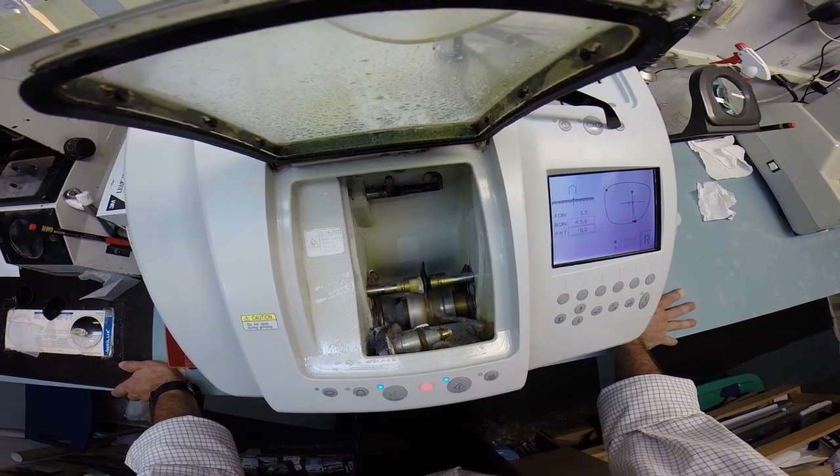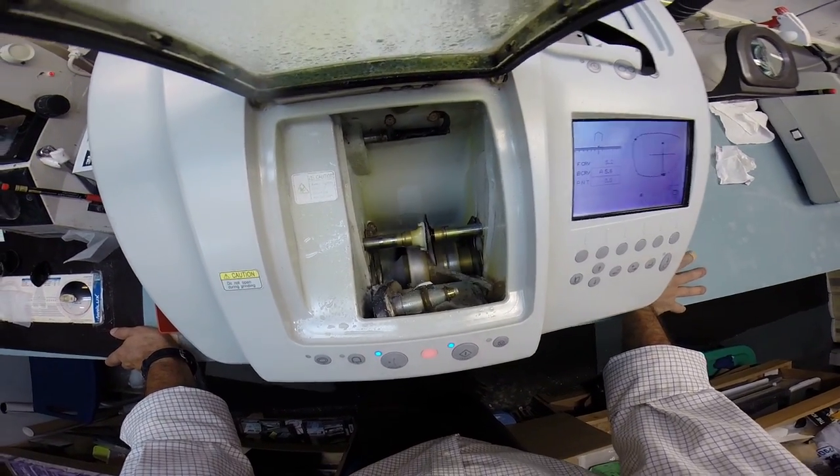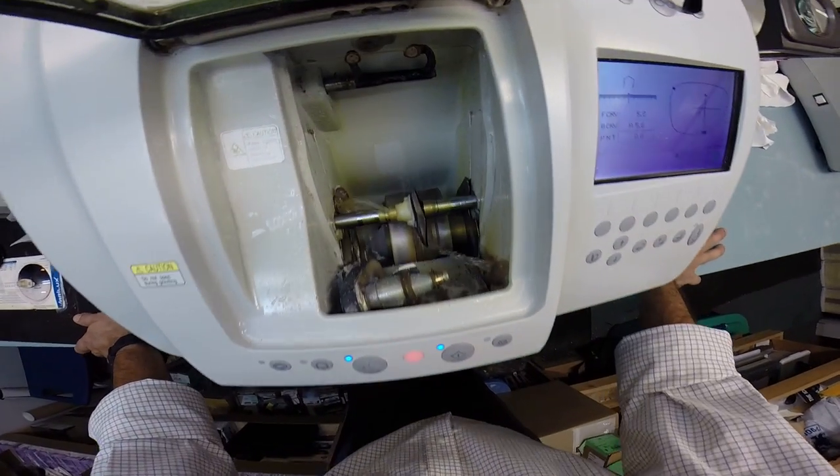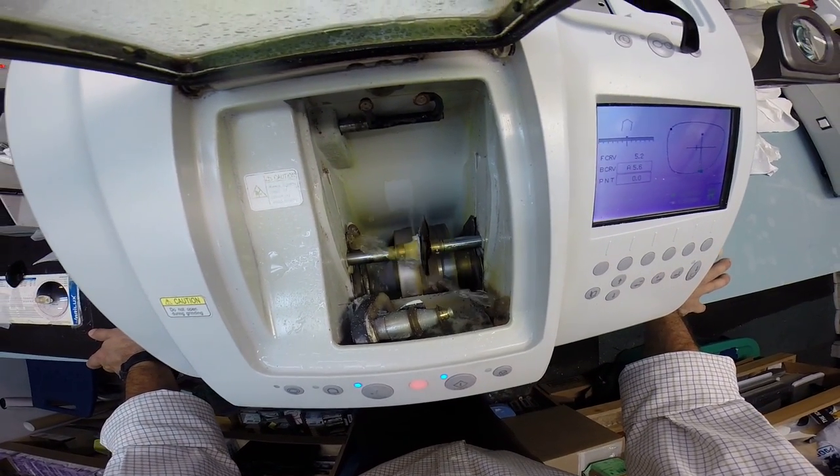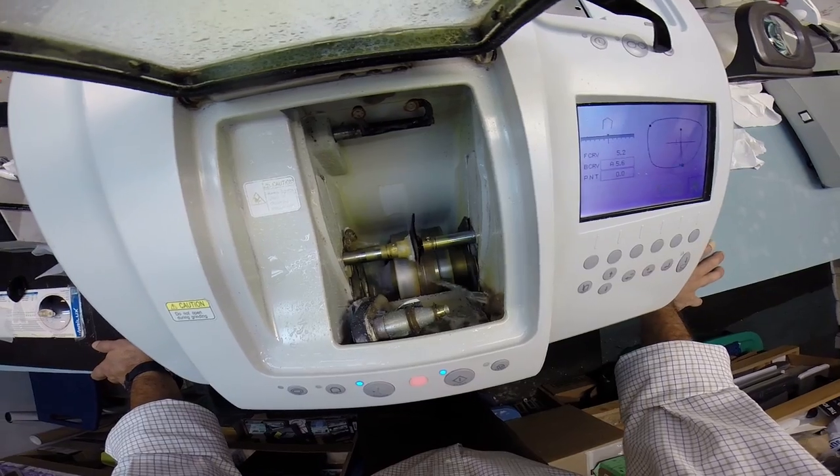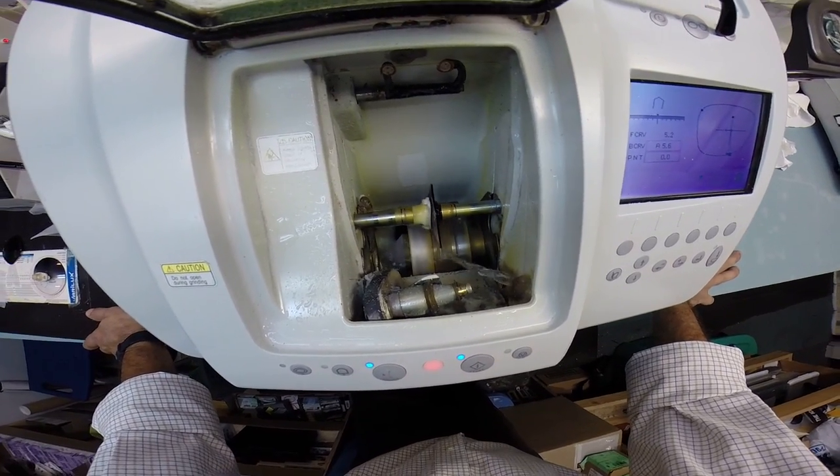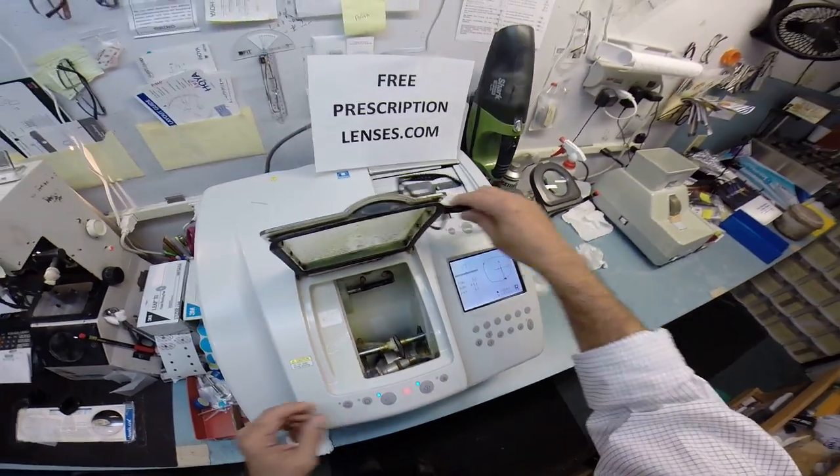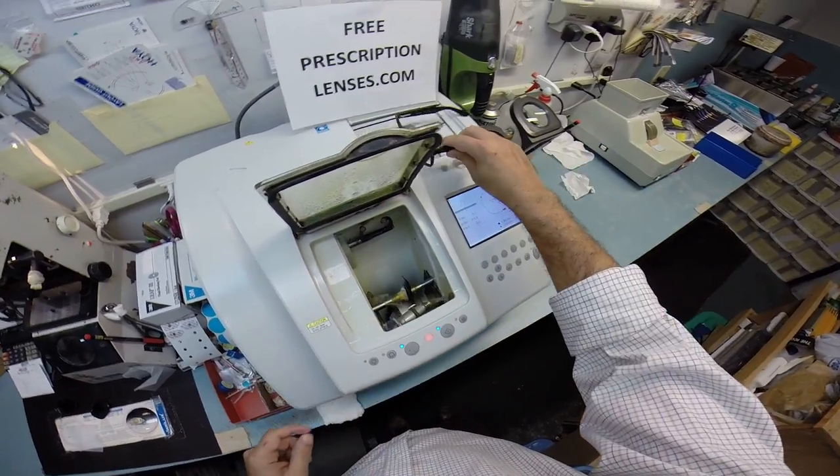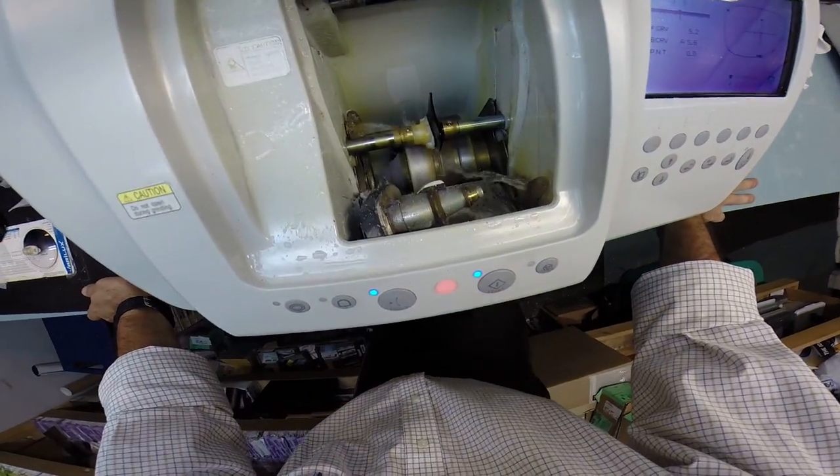Your lens was flat just a moment ago, just like a nickel. I could take it out and it would stand on the counter. Now, the bevel is being applied to the lens. The bevel is a knife-like edge that's going to fit inside the bevel of this frame.